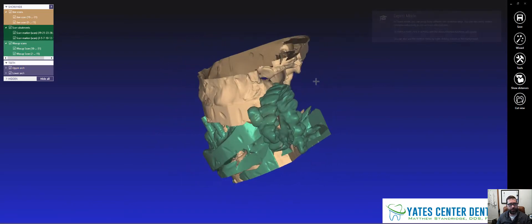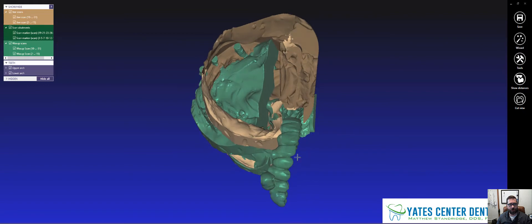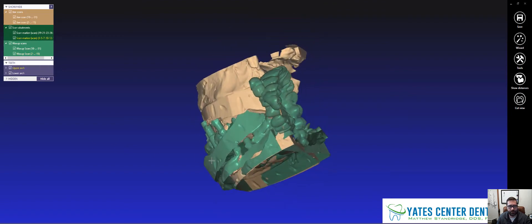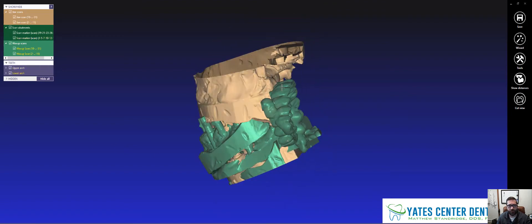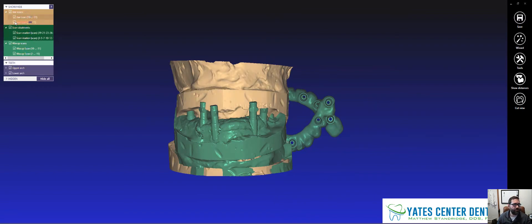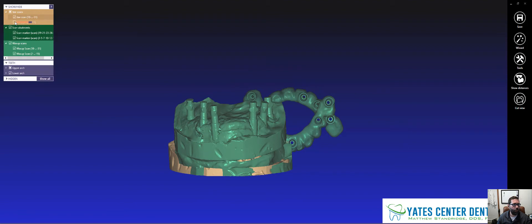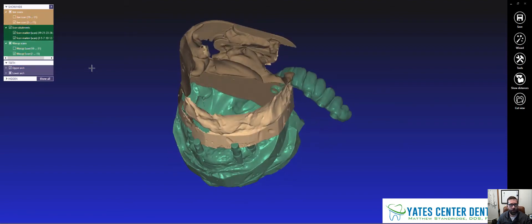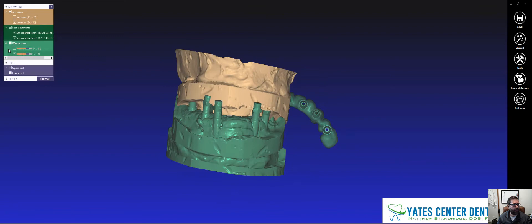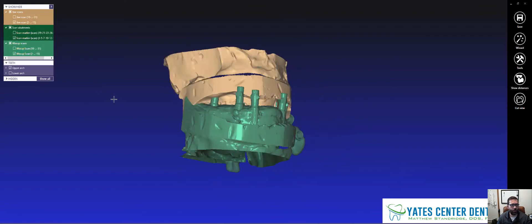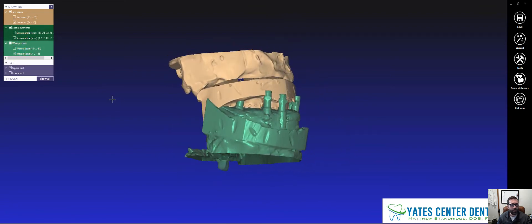And these are designs that I had done from a digital designer, and I outsourced the digital design and they kicked them back to me. So none of this is in relation, right? So it's kind of a cluster right now. But what I'm going to do is one jaw at a time. I'll start with the upper and just kind of go through this one at a time.